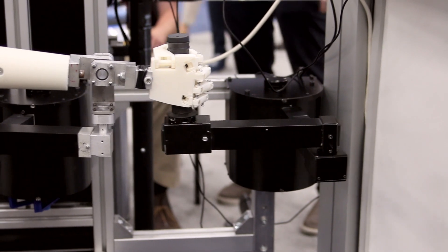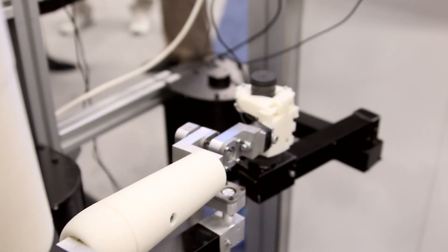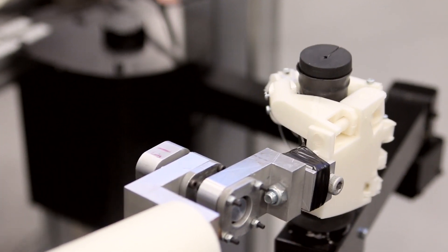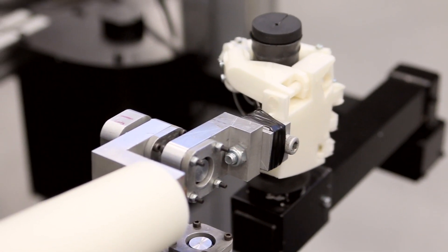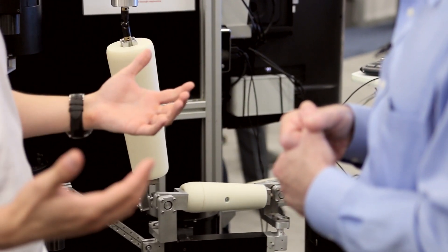How did you decide what kind of forces and pressures to put on the links to mimic a human being? Essentially, there's a lot of research been done at the University of Leeds. We're not the first team that's actually looking into it. So, what we did is we based it on the previous research that's been done. We looked at what sort of forces patients provide. And then we went further — we actually topped it up. We found that this arm can actually produce more force than patients, and even more than capable regular humans can. And what we found is that we can do stress testing as well. So, for approval, we can not only say we can mimic patients, we can even say we can go further. We can actually stress test the devices and provide even more forces that way.